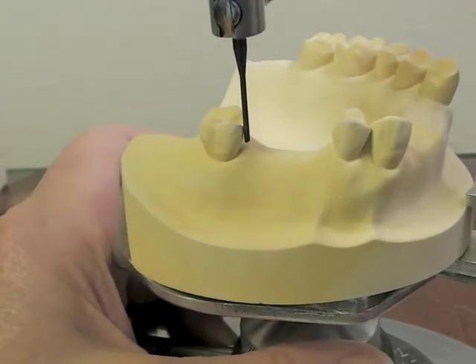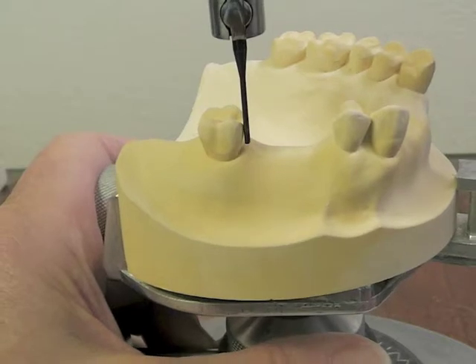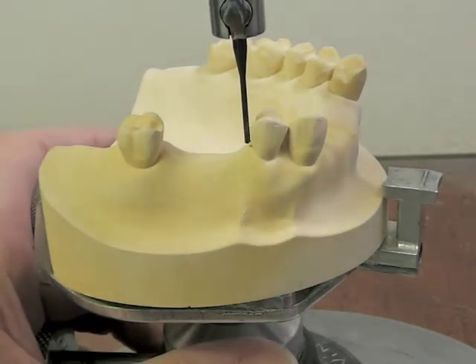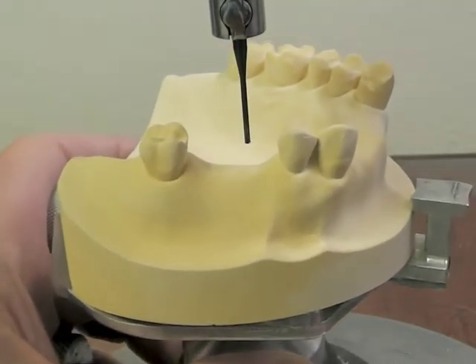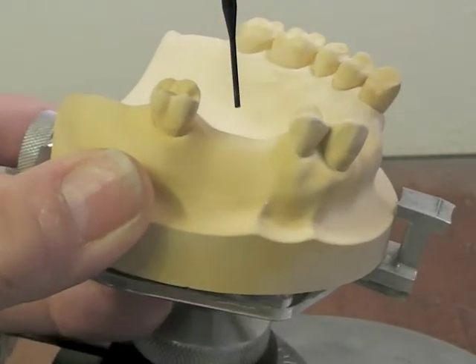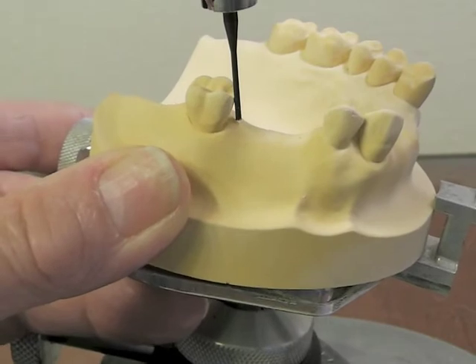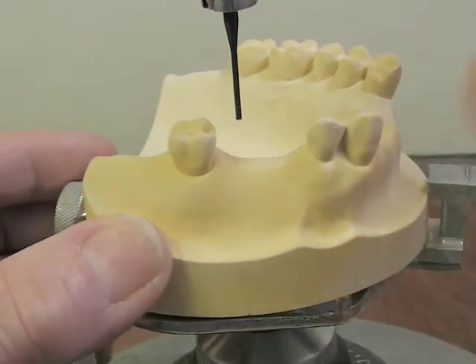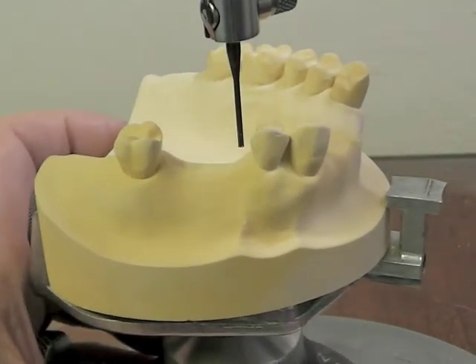We take that analyzing rod and look first at our guiding planes. On the side surface of my tooth, I would like to have about the same triangular space of light on both of these teeth. When you level the plane pretty much with the surveyor, you kind of have that situation already. If it were not correct, I could adjust my table to increase the spacing. You would want to adjust it anterior-posteriorly until you had approximately the same undercuts on each side, requiring the least amount of cutting on these teeth.